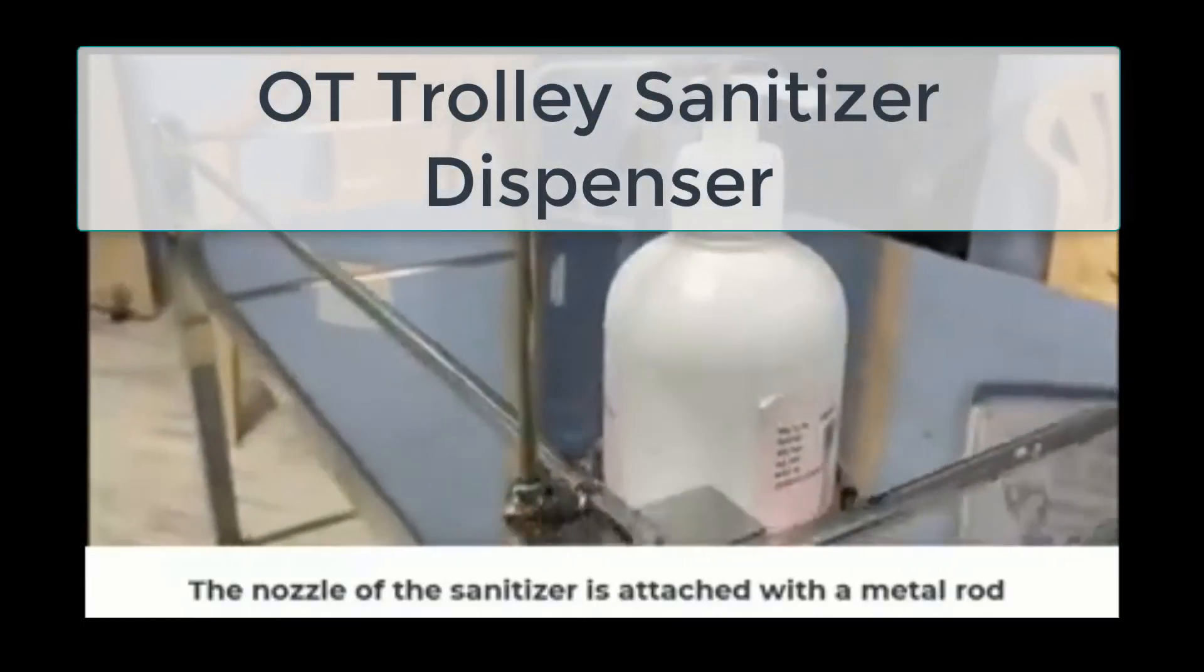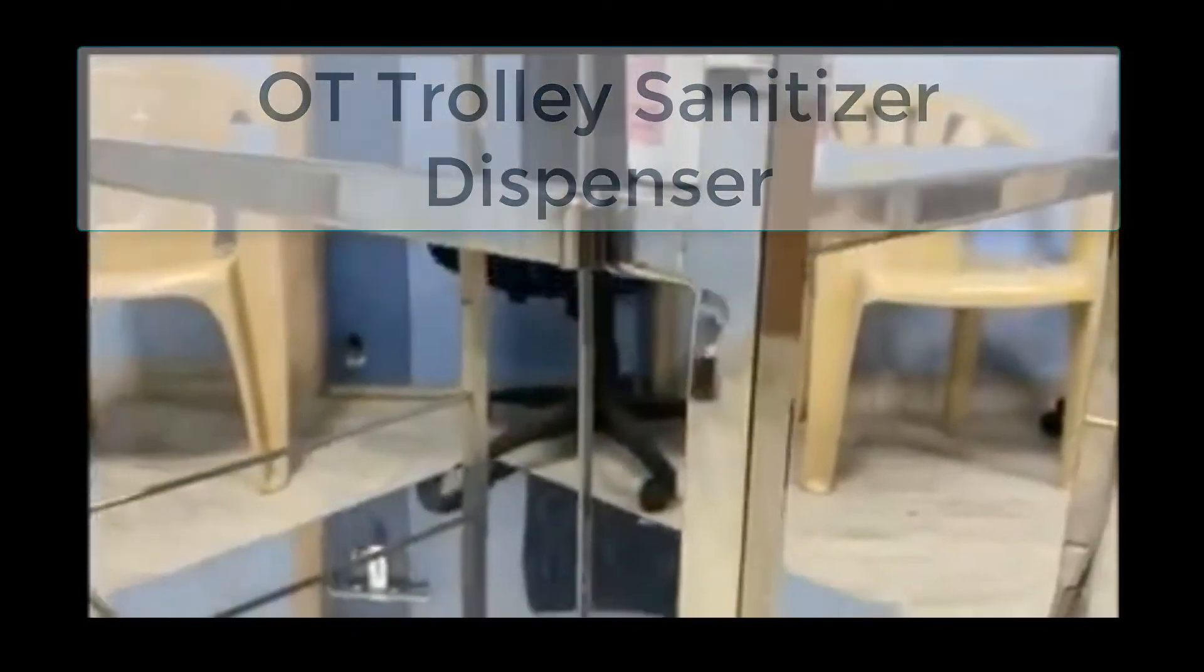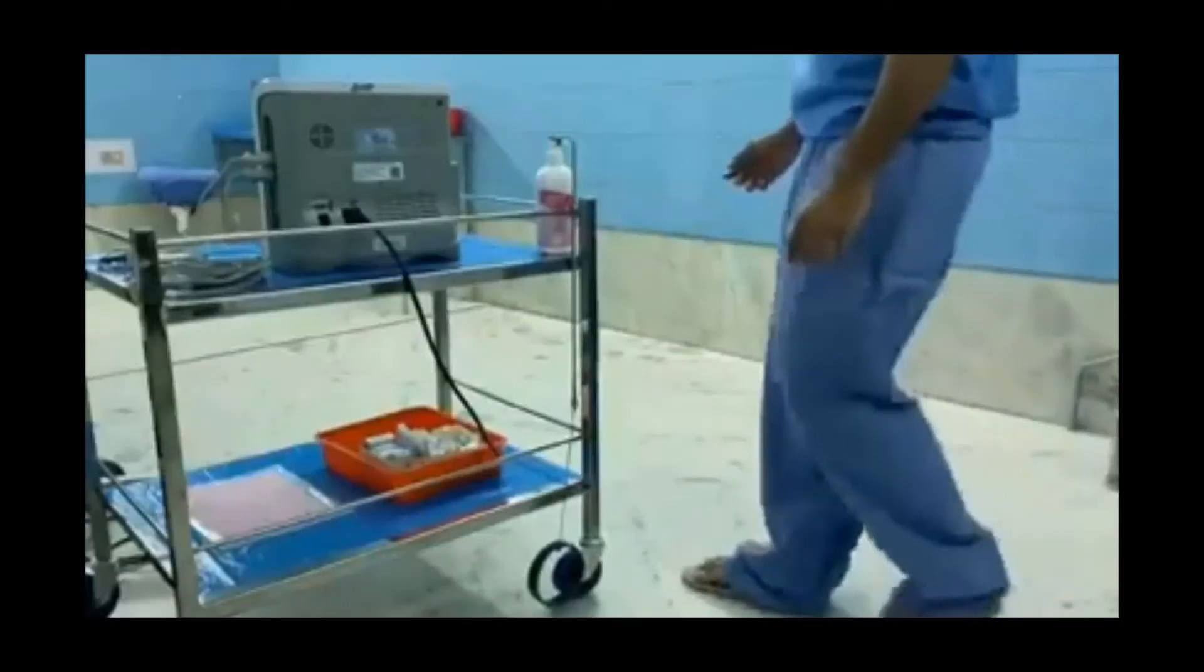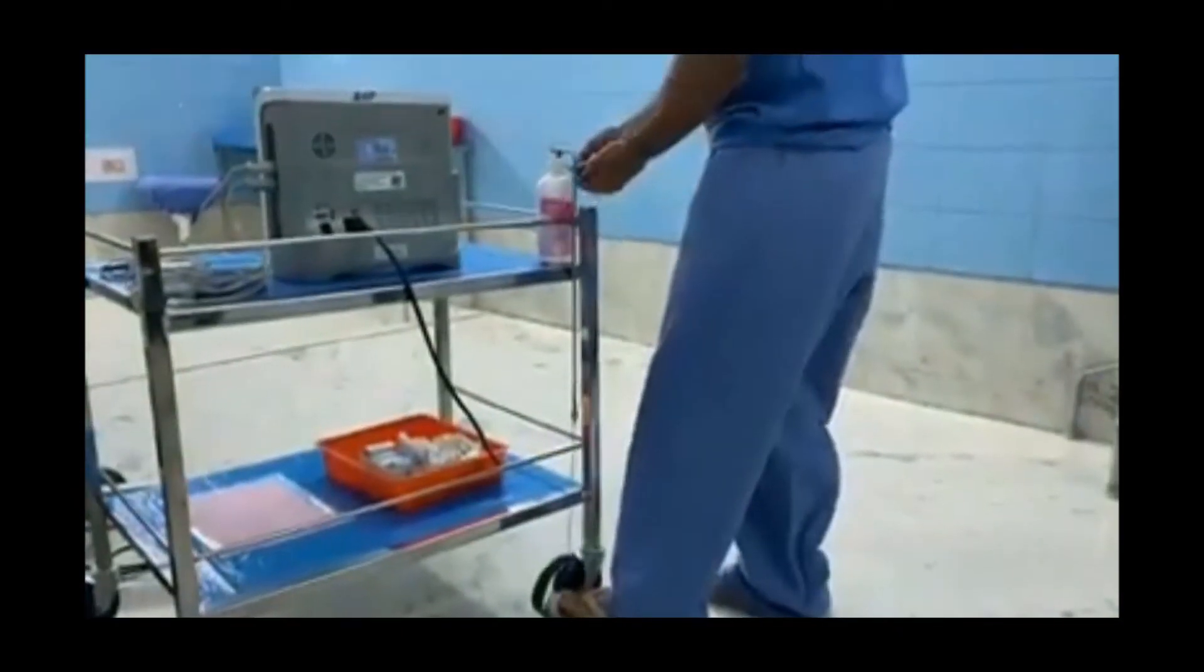OT Trolley Sanitizer Dispenser. It is portable and foot pedal controlled. It helps in hand sanitization by the OT personnel at frequent intervals.